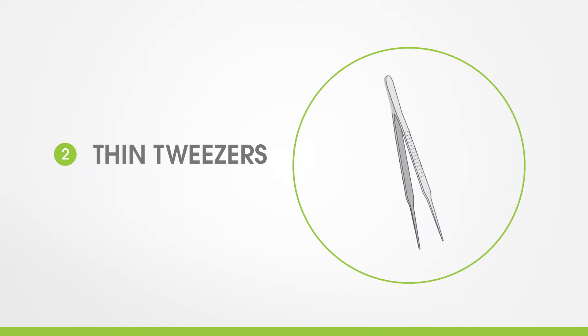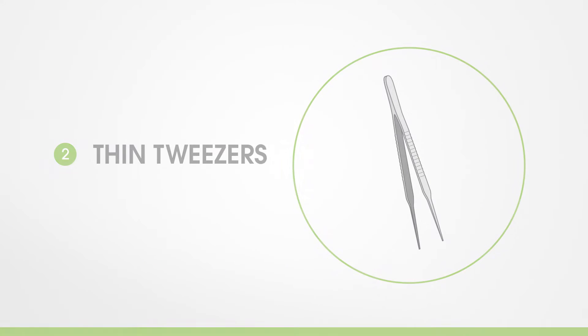Second, a small tool that will allow you to push the battery pin through the hinge holes. Many manufacturers provide a tool or you can use something similar to what we have, thin tweezers.